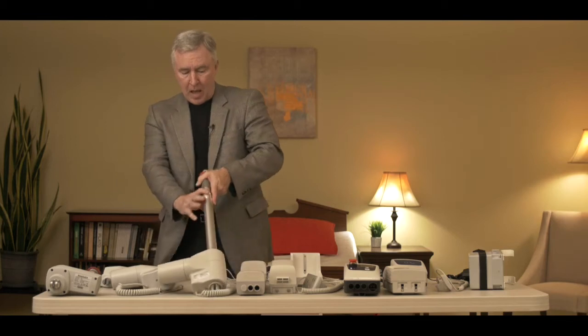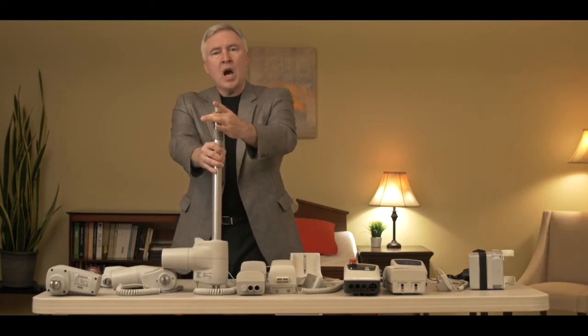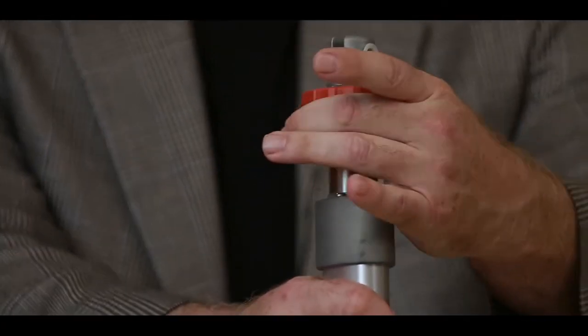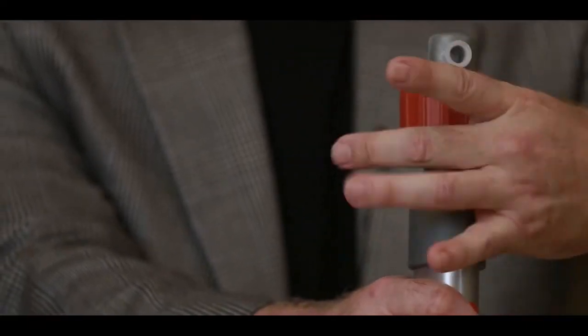The third style you may have has a red knob on the top. That red knob is turned to lower the actuator down.